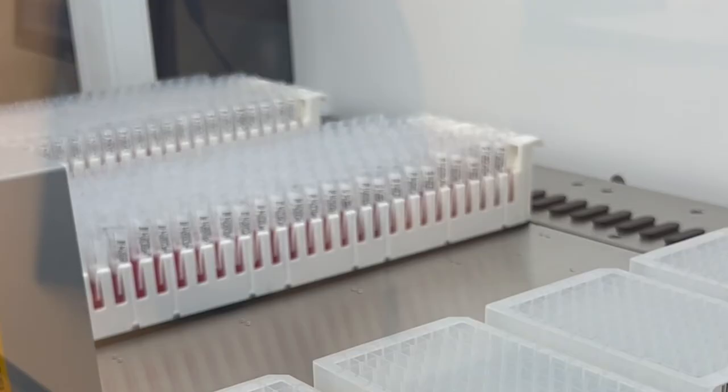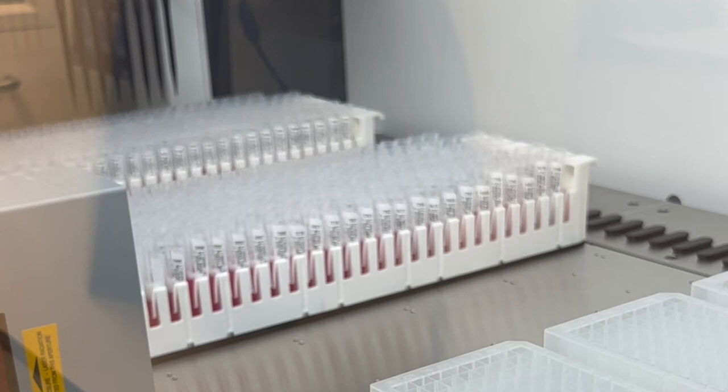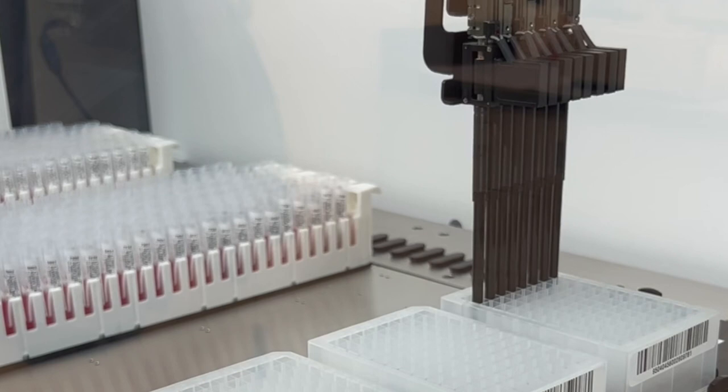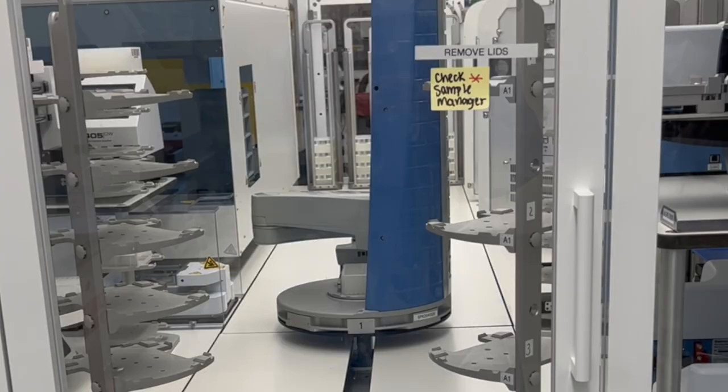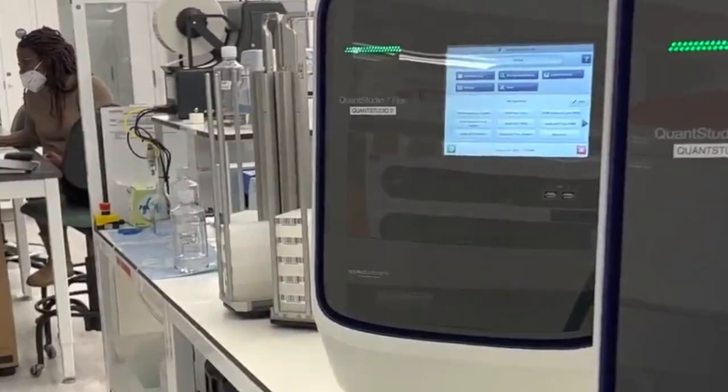The Amplitude system utilizes two modules for specimen processing. First, samples are transferred from tubes to plates by a liquid handler system. Then, by use of a robot arm, the plates containing patient specimens are processed for RNA extraction and PCR analysis to detect gene targets of the SARS-CoV-2 virus.